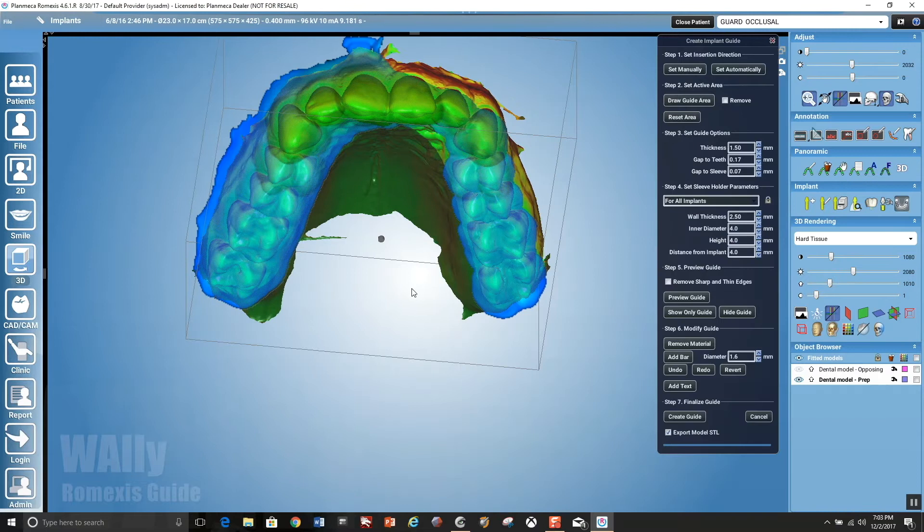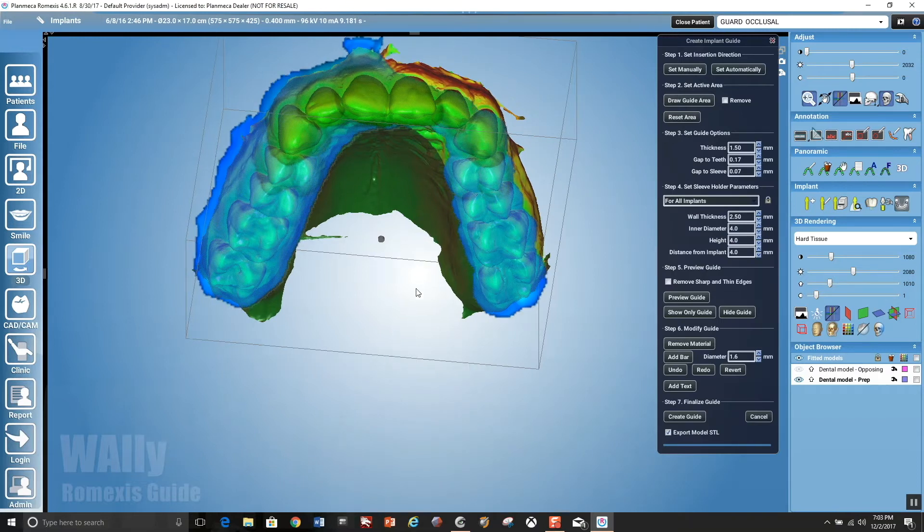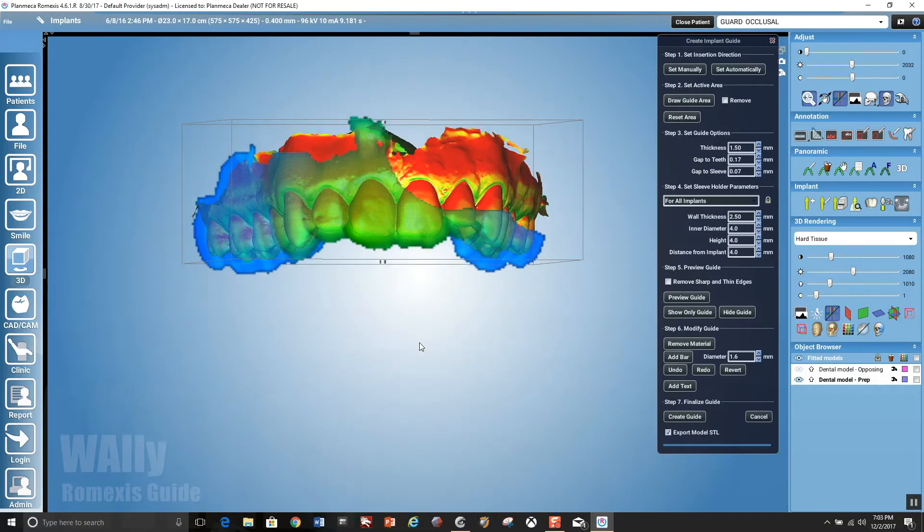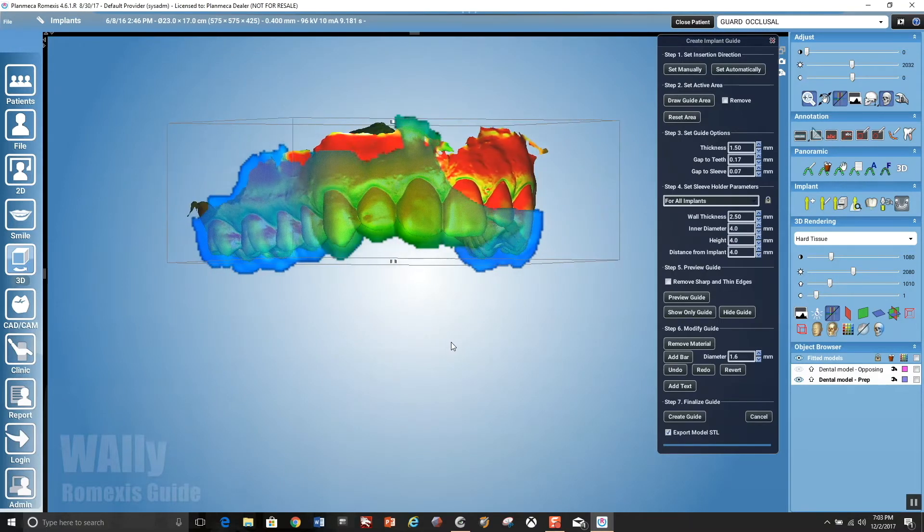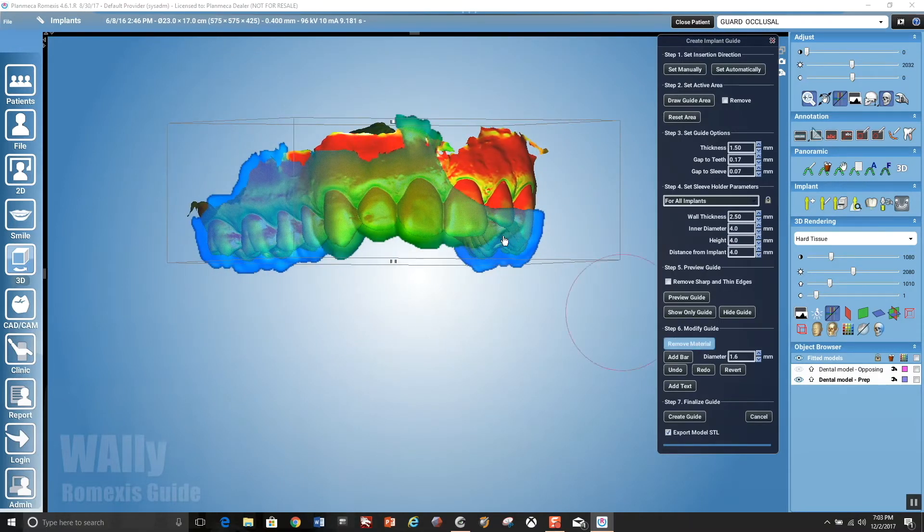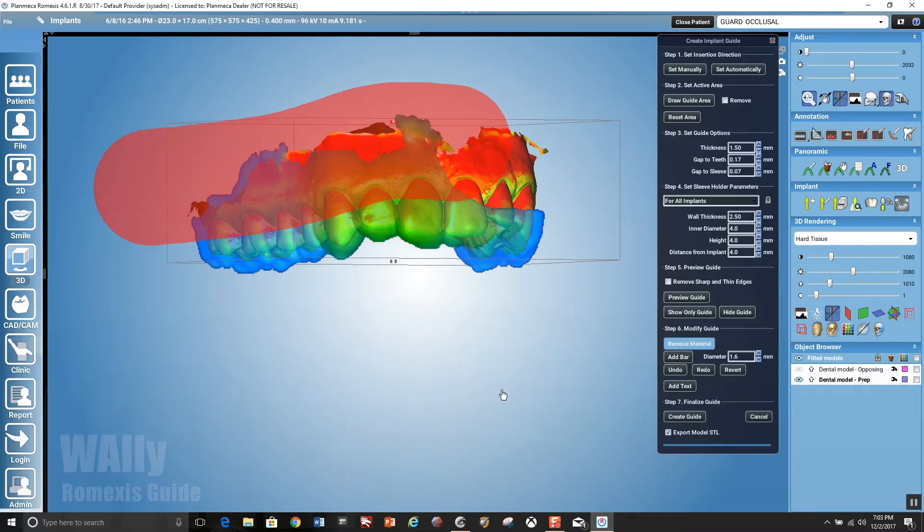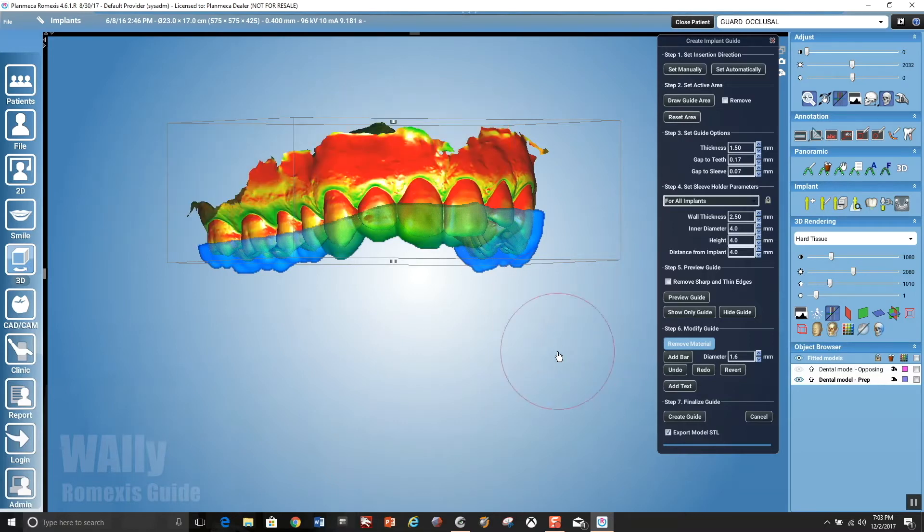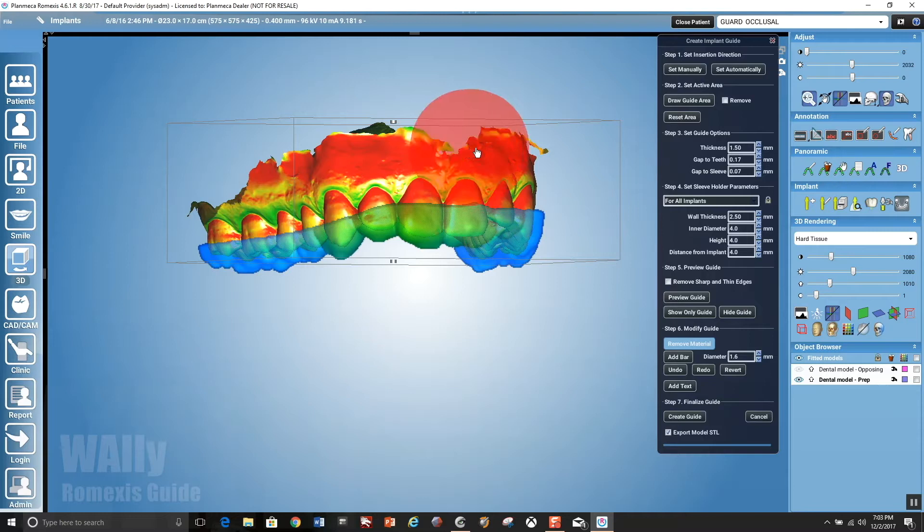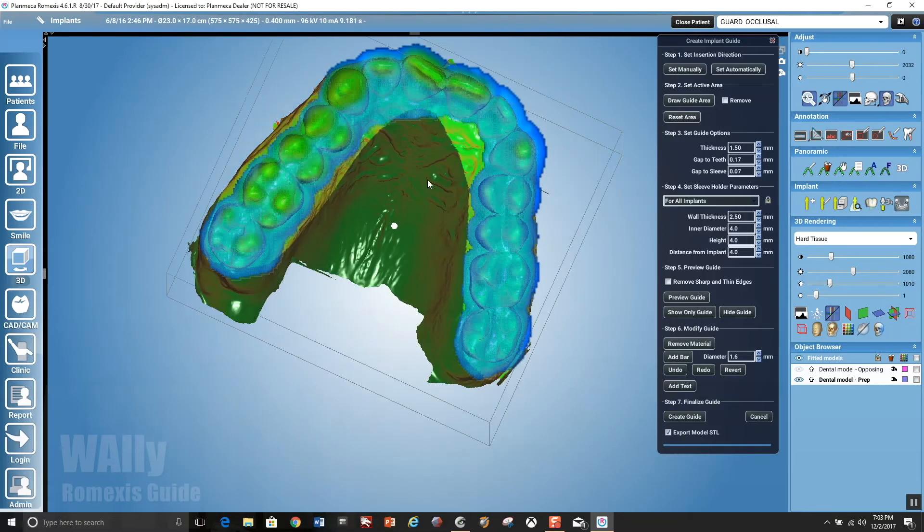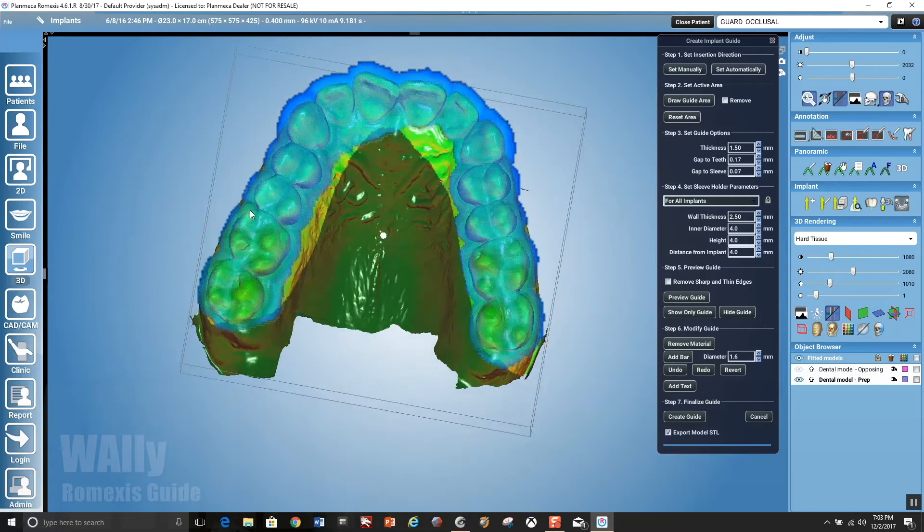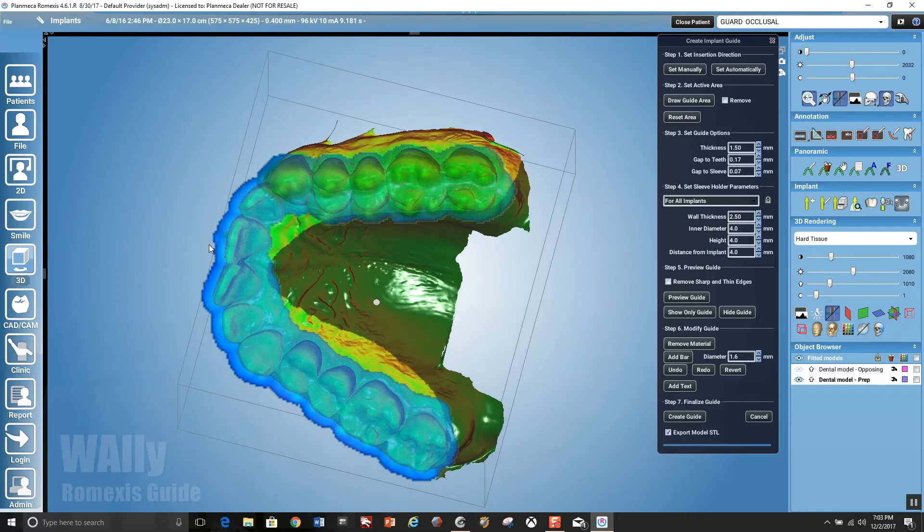So you want to be careful of that. Hit undo, and make sure that you orientate the model in such a way that you're not going to be erasing extrapolated data behind what you really intend to erase. And we're almost done with the guide part here. We're just smoothing up.